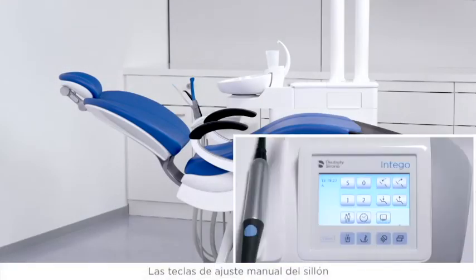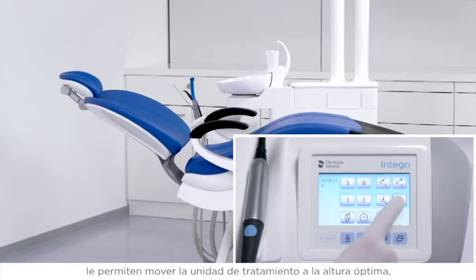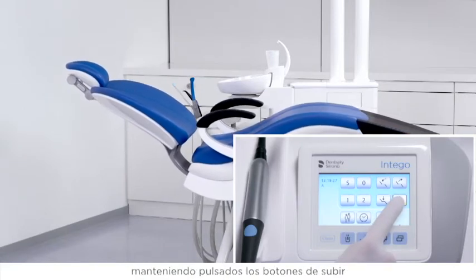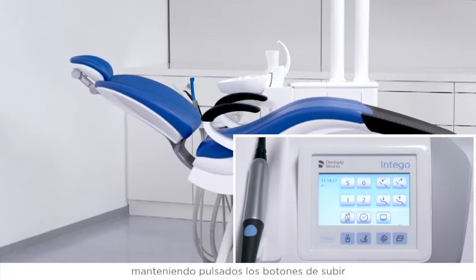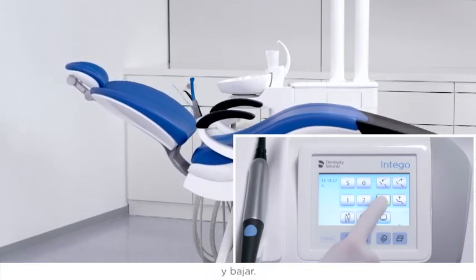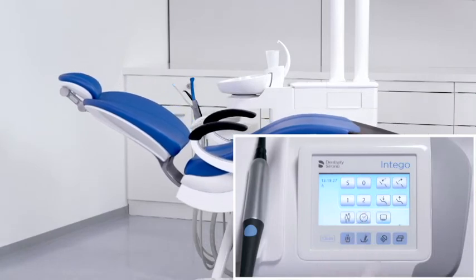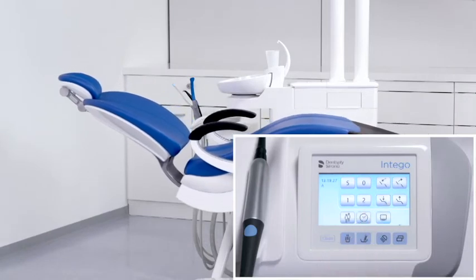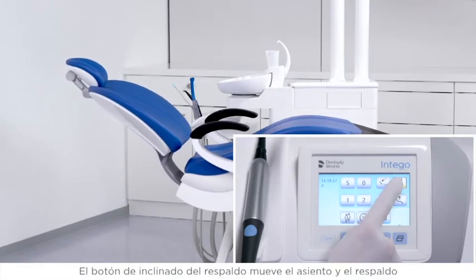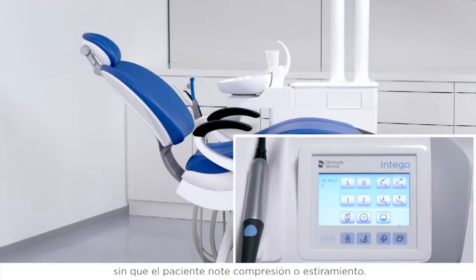The manual chair adjustment keys allow you to move the treatment center to the optimal height by holding the up or down button. The backrest tilt button moves the seat and backrest without any compression or stretching effects for the patient.